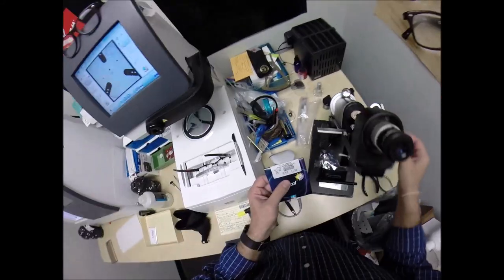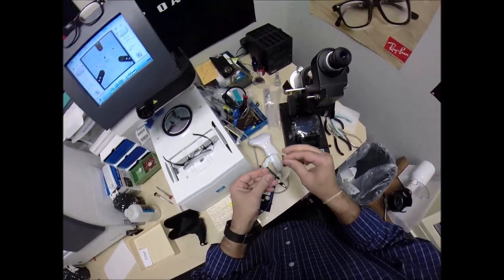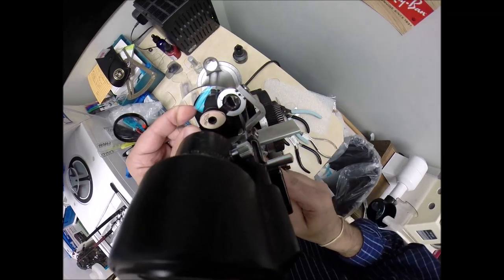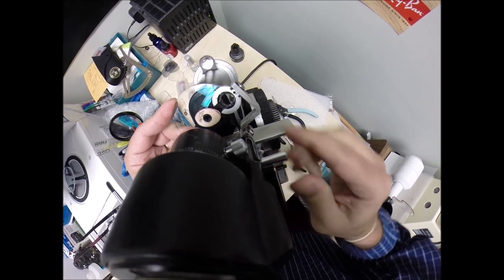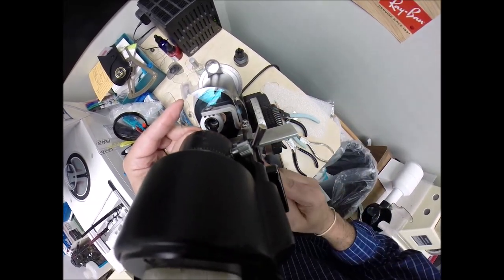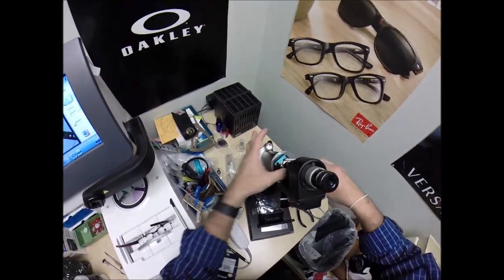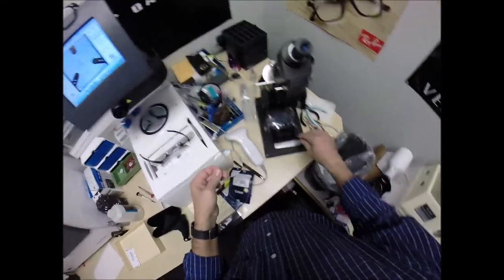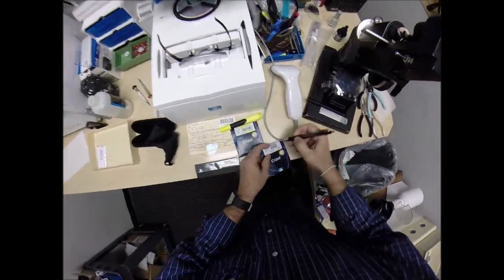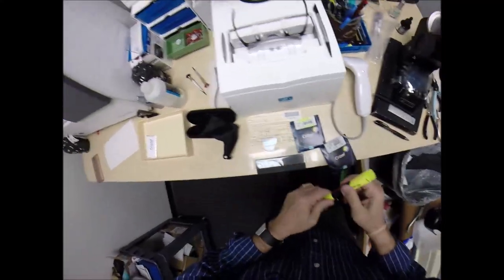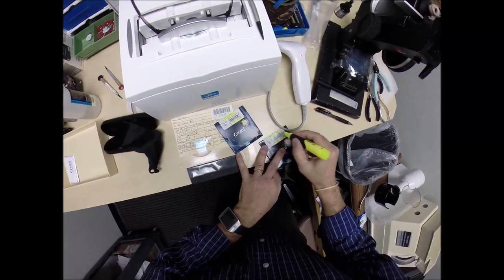Let's turn that to 45. Put the power drum on minus 2.75. Take the lens out of the protective packet. Take the laminate off the front of the lens. Put the lens in. Actually, I don't even have to rotate this one. I almost got it right. Let's move that. Get everything lined up just like the crosshairs of a scope. I'm measuring vertically and horizontally. Make sure everything is where it's supposed to be. Let's put three dots on your lenses. And this one is L for left. Let me mark. As I mentioned, this is the left lens. Minus 2.75, minus 1.50. I make sure to write this on here.